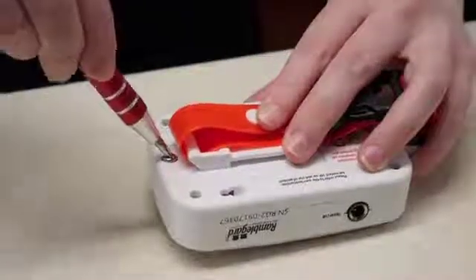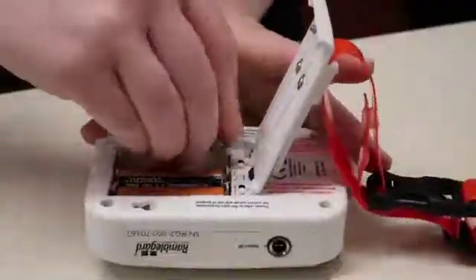DC power socket: the companion can be used by an optional 6V 300mA adapter. Battery cover and integrated wall mount clip requires three AA batteries.